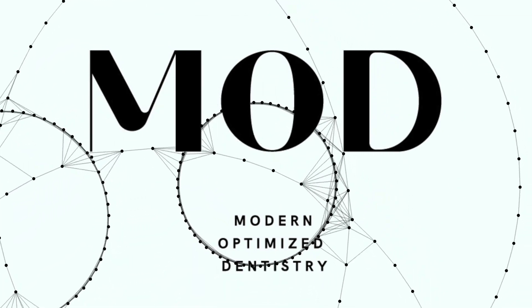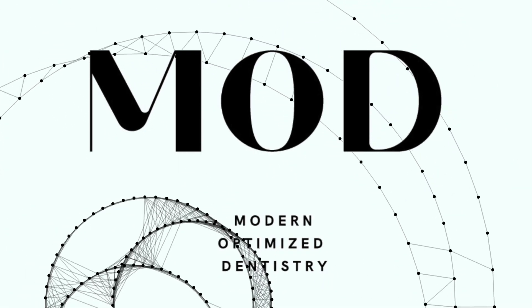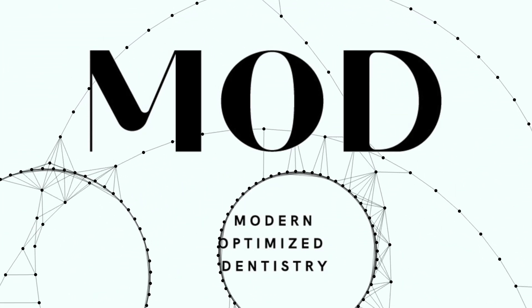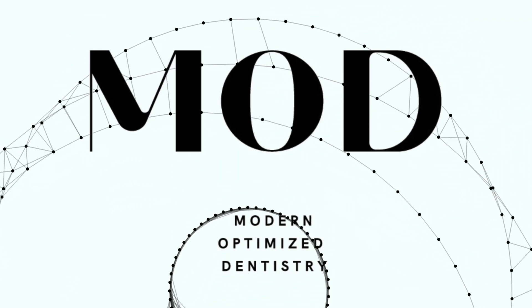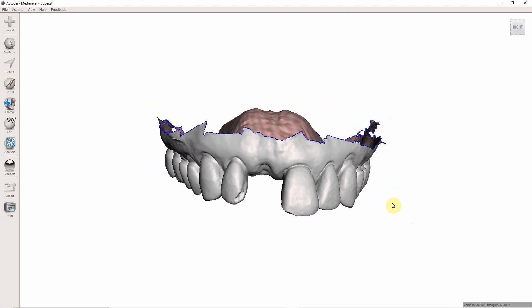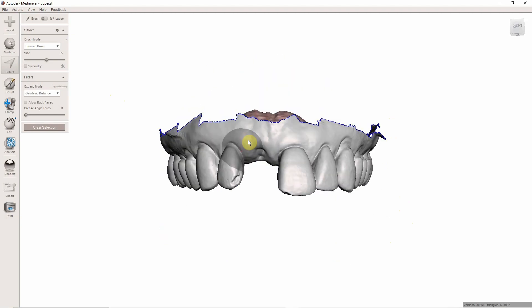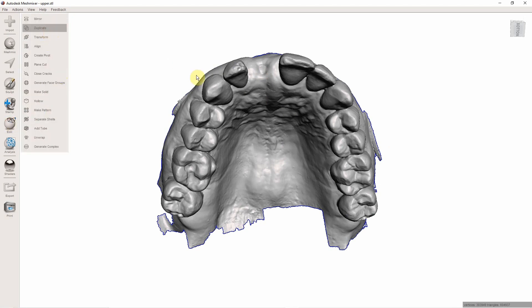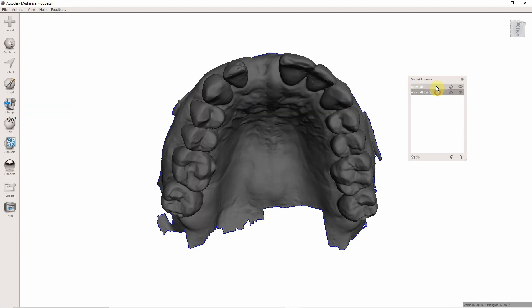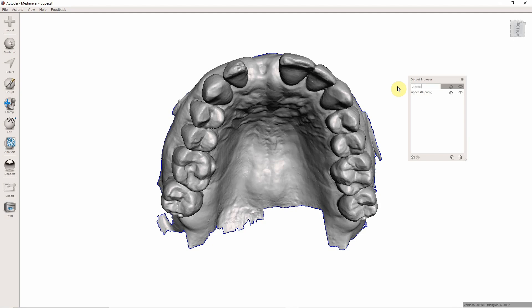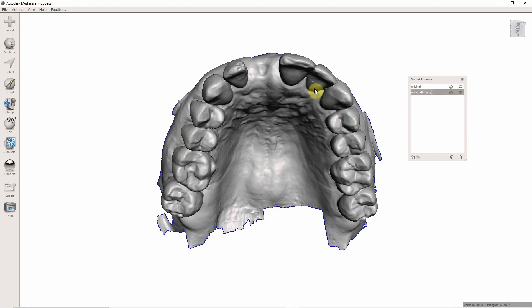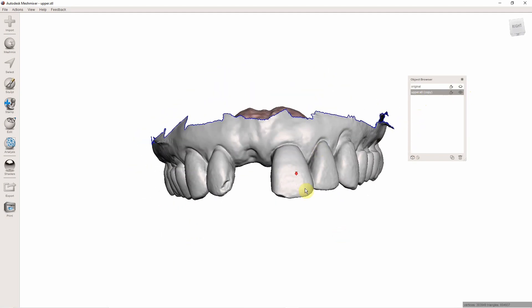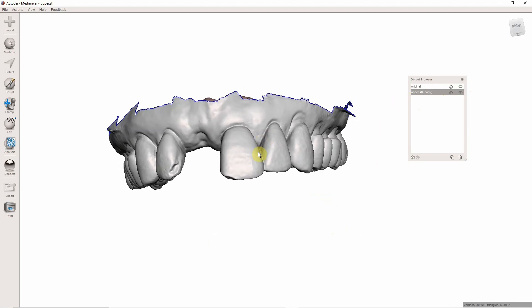Nevertheless, I'm going to teach you guys how to do this because nobody taught me how to do it. I had to figure it out the hard way. So let's get started. The first thing is we need a tooth to go into here. You could download teeth from the tooth library - Christian Brenes has one, the IDDA guys have one. But what I'm going to do is just copy this tooth. Before I do that, I'm going to duplicate this model to have a backup. So I'm just going to hit Edit, Duplicate. That's going to create in my objects browser two models. You could rename the first one and just call this original so that I don't mess it up. I'm actually going to hide that one by hitting the I, and I'm just going to be working off this duplicate model and leave my original unaltered. That's going to be important for later.